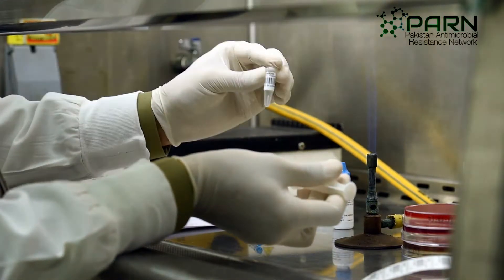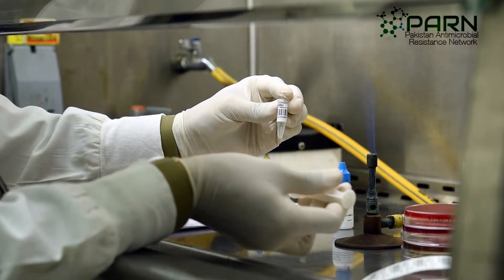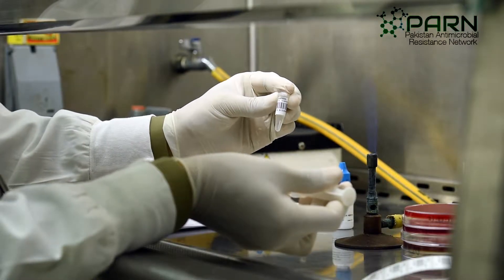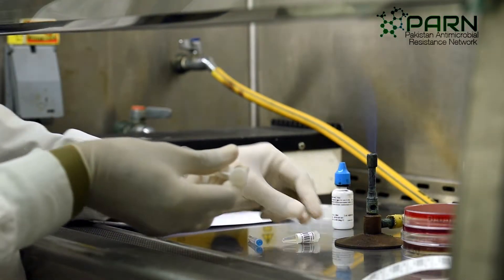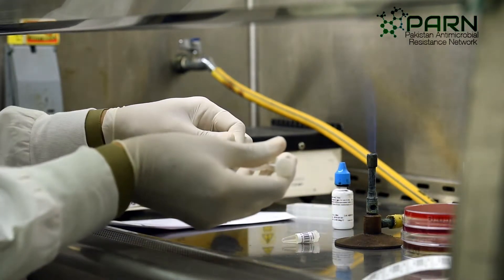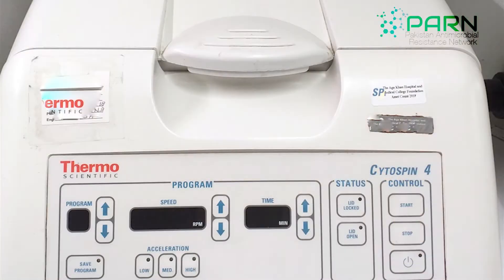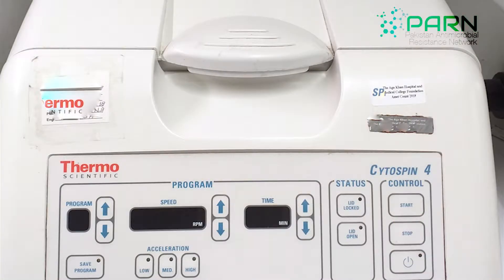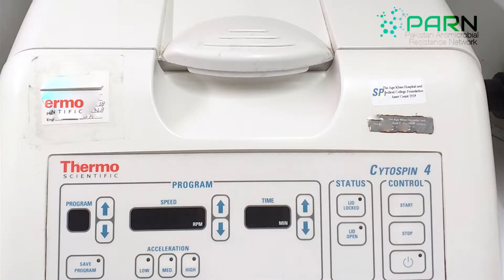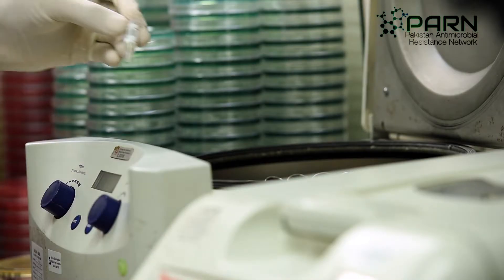If the quantity of specimen received is less than 1 ml, it should be inoculated directly onto the culture plates. If sufficient quantities are available, use a cytocentrifuge to concentrate the specimen.